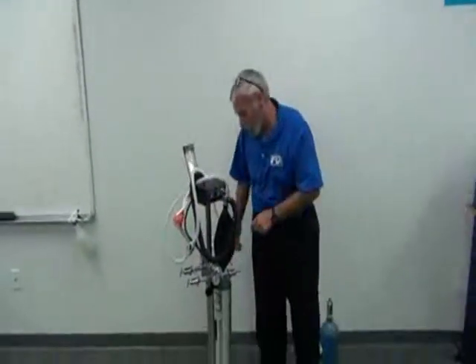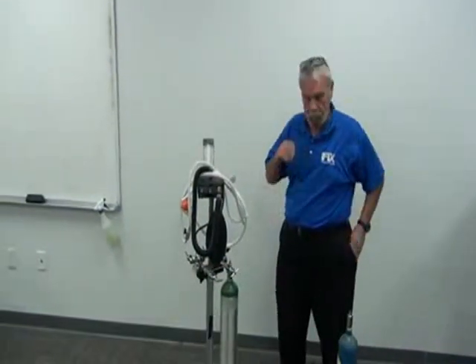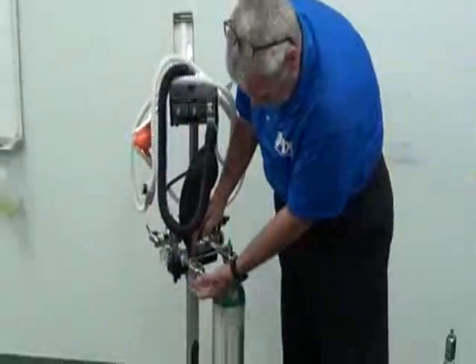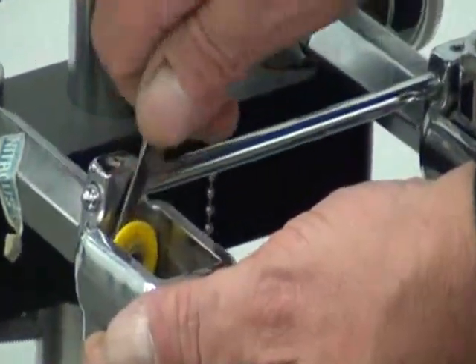Now, a lot of your problems, you're going to say, my gas is leaking. The doctor's going to say, my gas is leaking, I'm using a lot of gas. Well, look, there are washers that go in this yoke. I'm going to pull one out here and show you. If I pull it out without tearing it up, more power to us all.